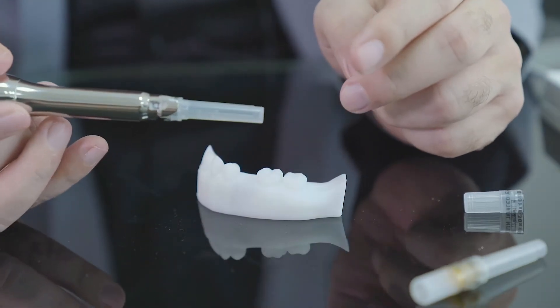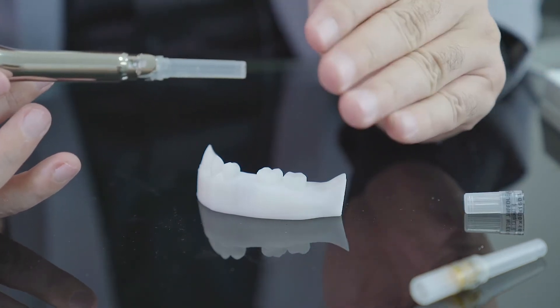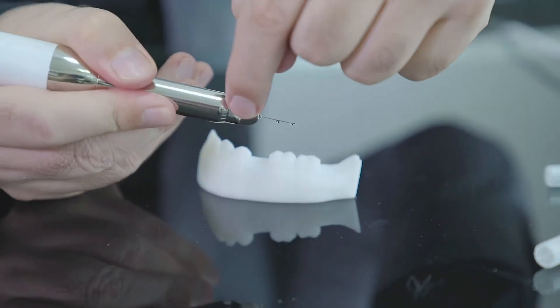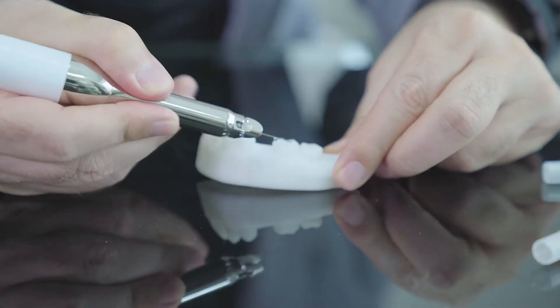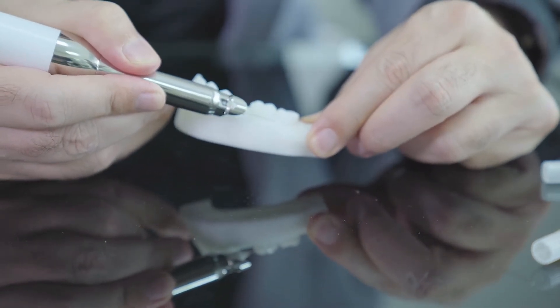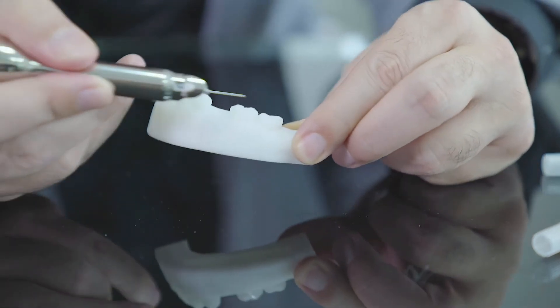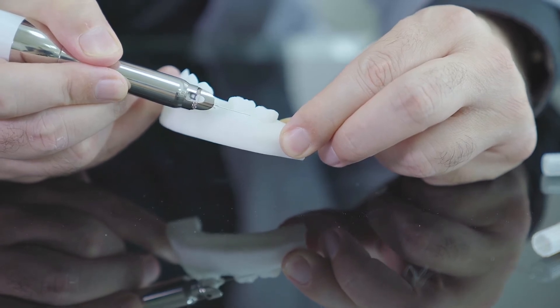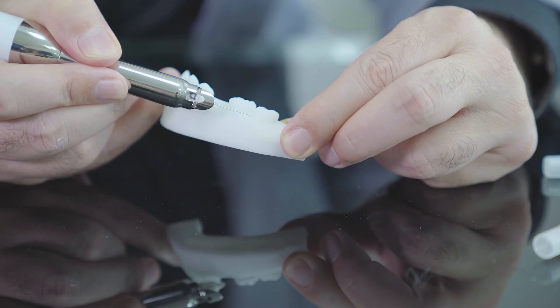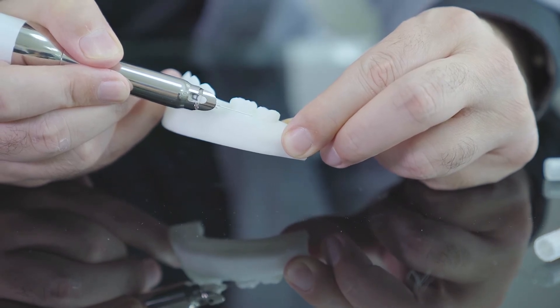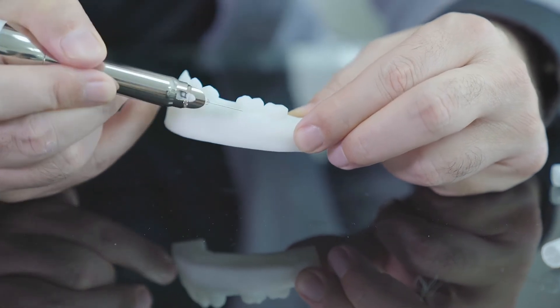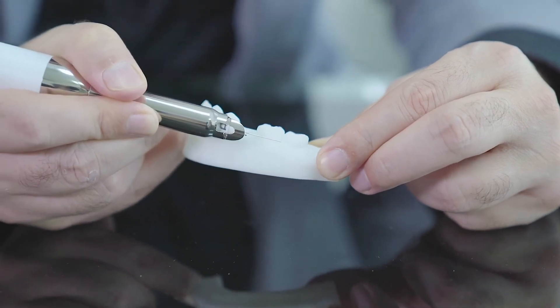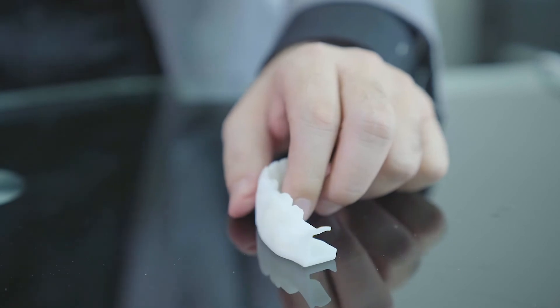Before starting my anesthesia, let's divide the process into three virtual parts. The direction of the D is to this side, going very superficially into the gingiva. For sure, this is a demo so no gingiva, but it is a virtual position. Going like this inside gingiva and applying injection of a few drops of the anesthesia material. After having the white space on, the white area, the white point, I go out and change my direction.